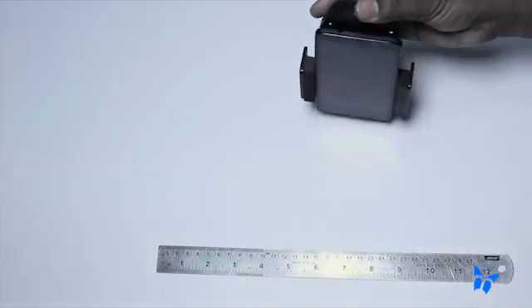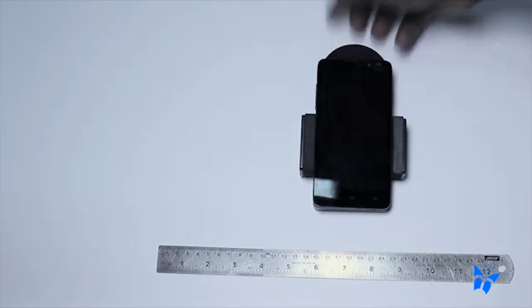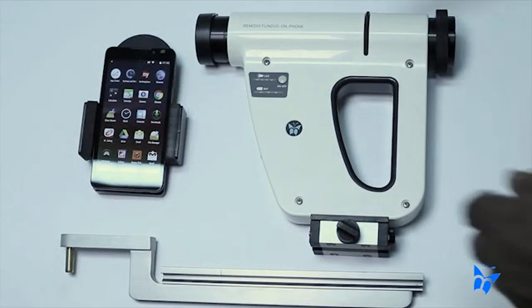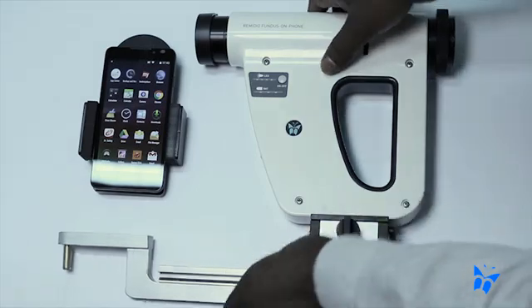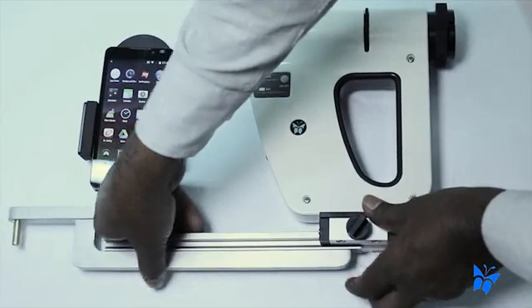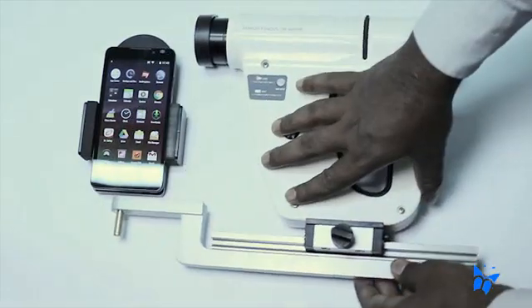This ensures that the phone is fixed securely on the universal phone holder. Next, loosen the knob screw on the guide provided on the FOP device, and slide in the slit lamp attachment feature.